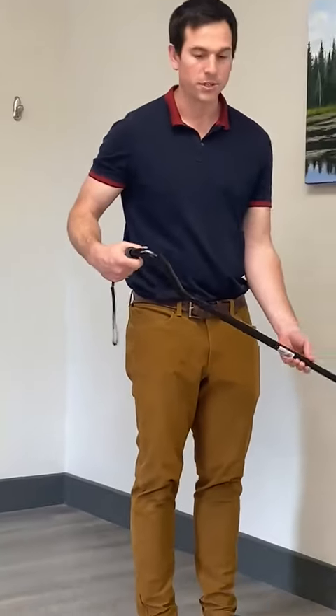So after you have it appropriately sized, if it's not comfortable — if it feels a little bit too tall or too small — you can bring it up or down to level.